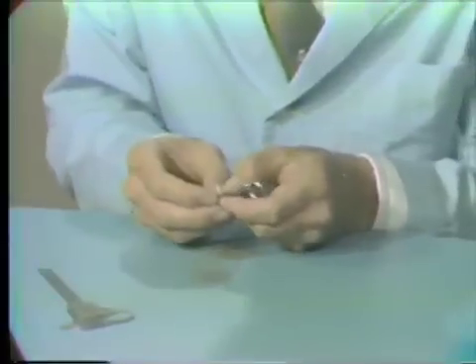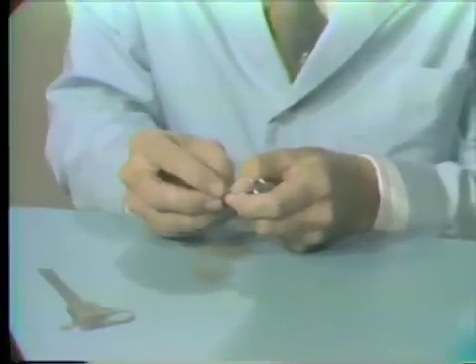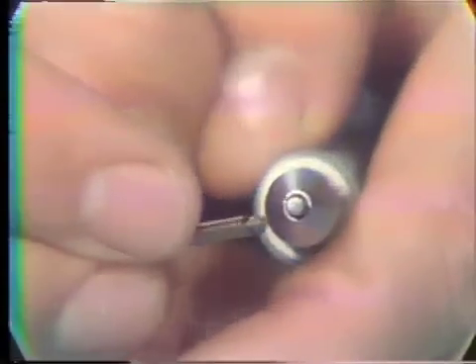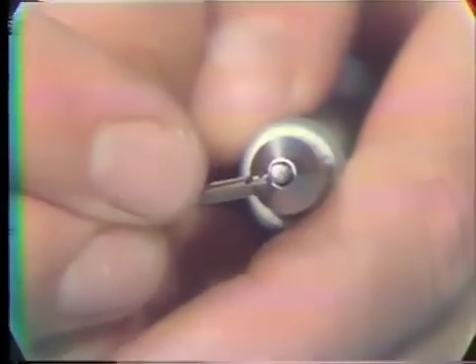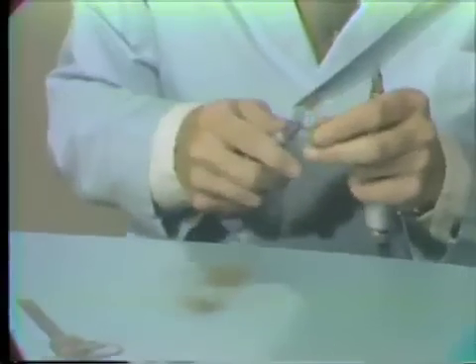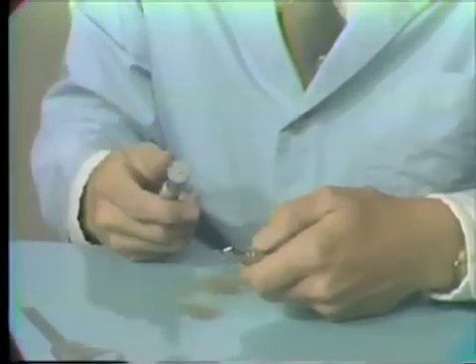If you notice on the commercial latch head burr, there is a flat spot that has been ground into it. This is what we have to duplicate into the one that we've just ground the groove into. The best tool to use for this would be a heatless stone. Hold it at an angle with the burr rotating in the handpiece, and grind the flat spot into it. If you don't have two electro-torques, you can put the burr you are cutting into the pliers to hold it.